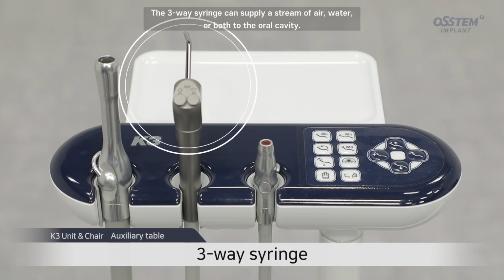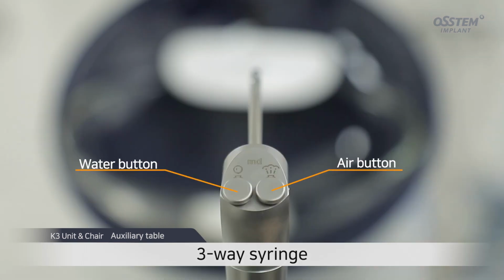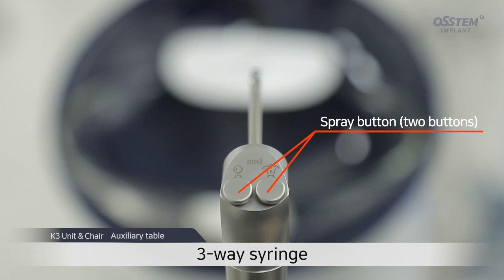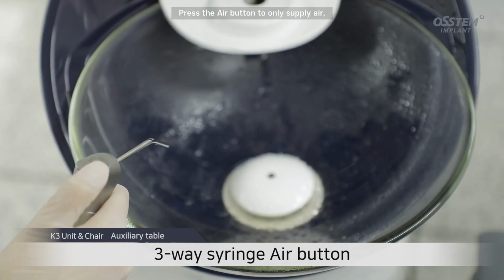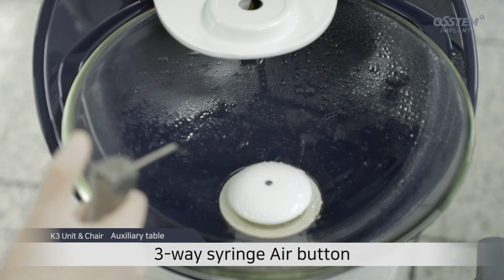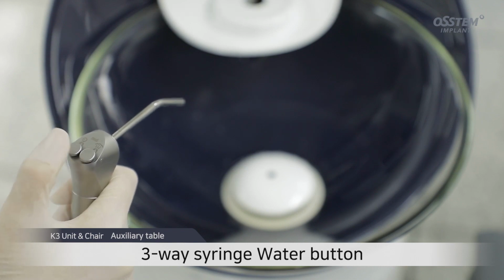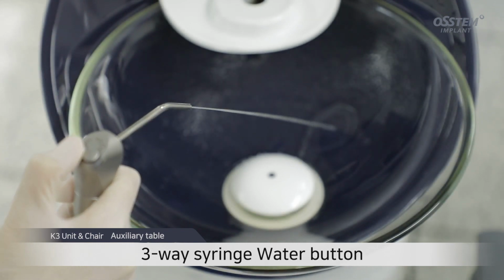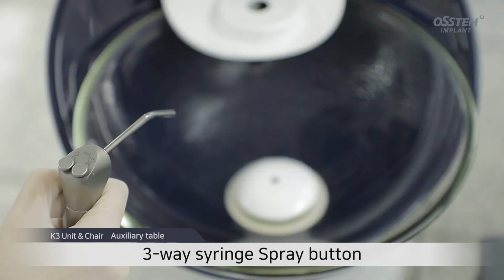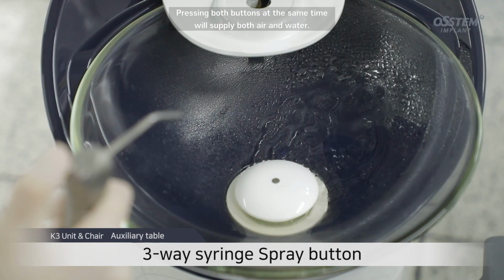The three-way syringe can supply a stream of air, water, or both to the oral cavity. Press the air button to supply only air, and press the water button to supply only water. Pressing both buttons at the same time will supply both air and water.